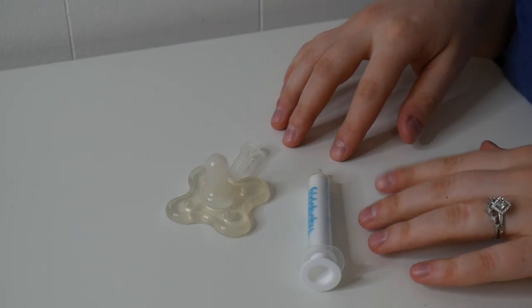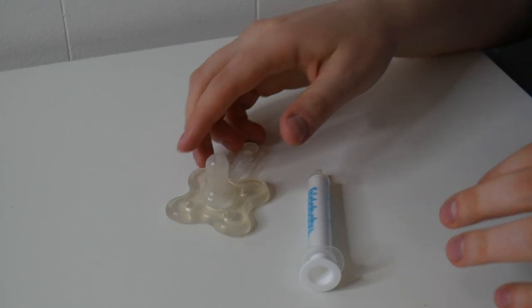Right here I have the Frida Baby Medicine AccuDose Pacifier. Let's go ahead and give you a closer look. Here's an up-close look at the Medicine Pacifier itself.